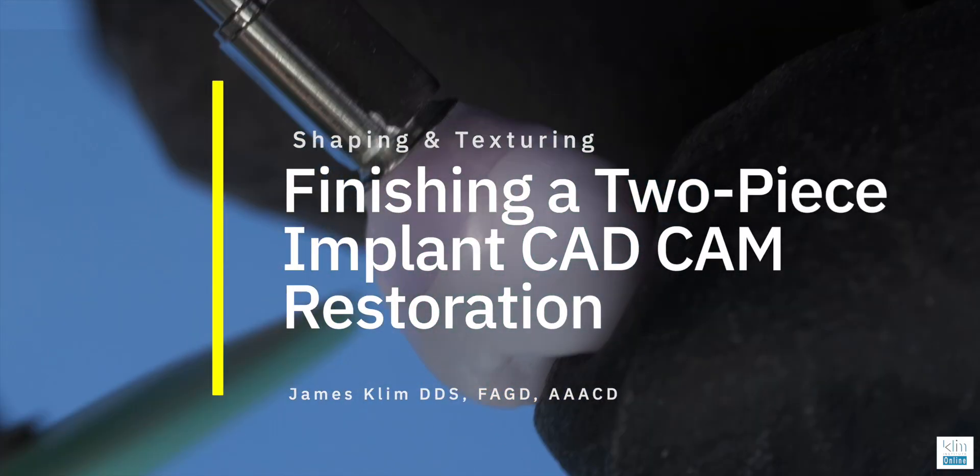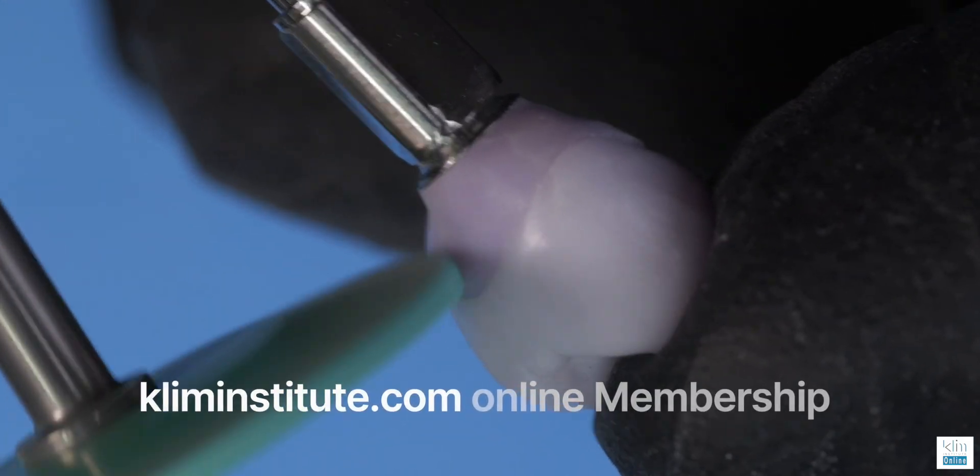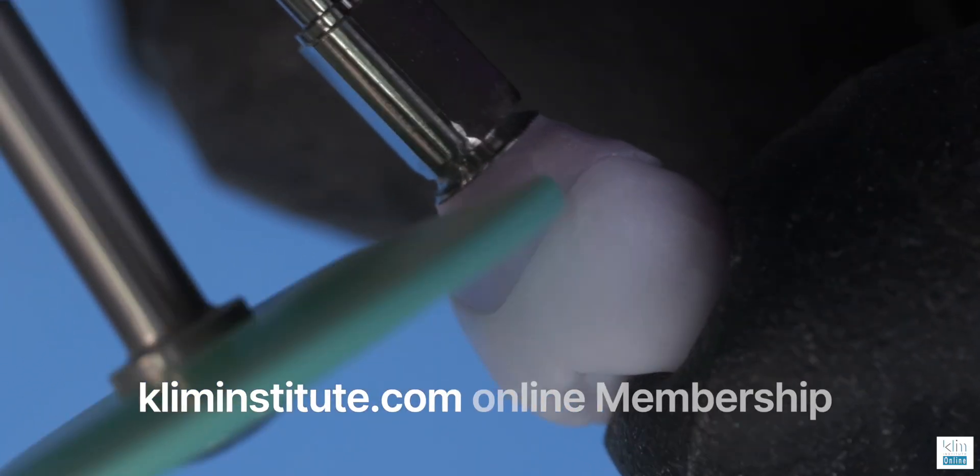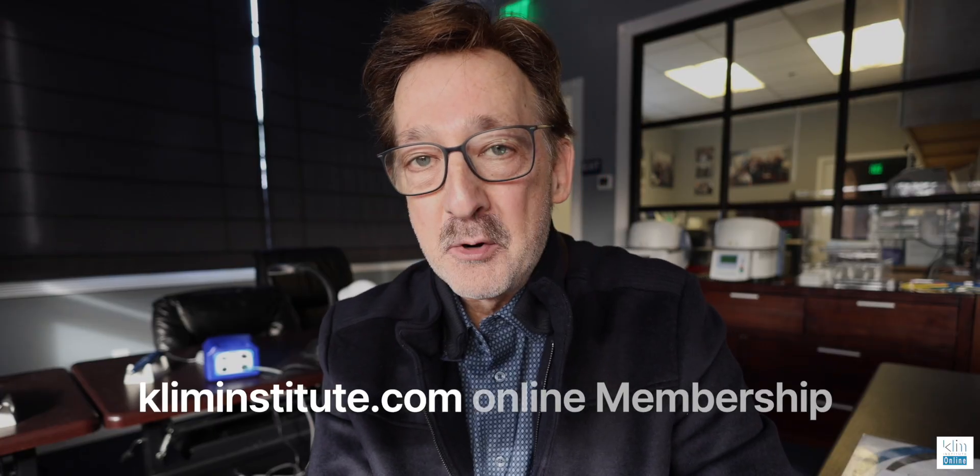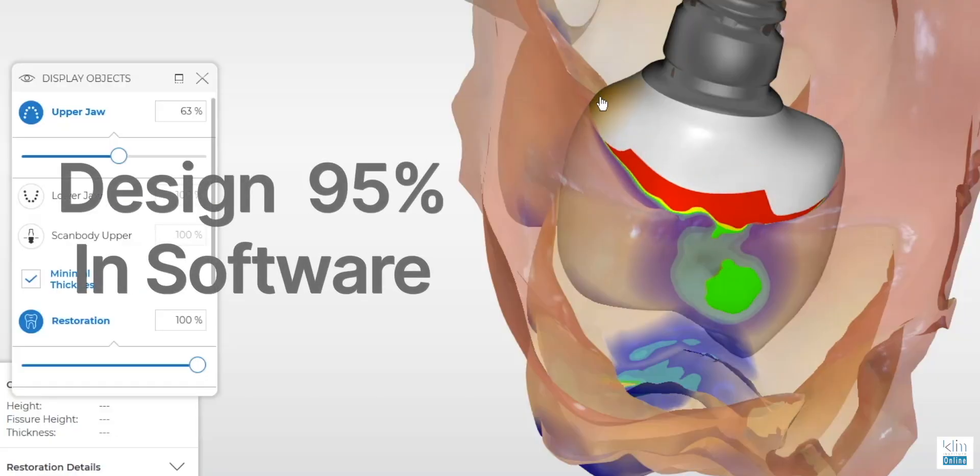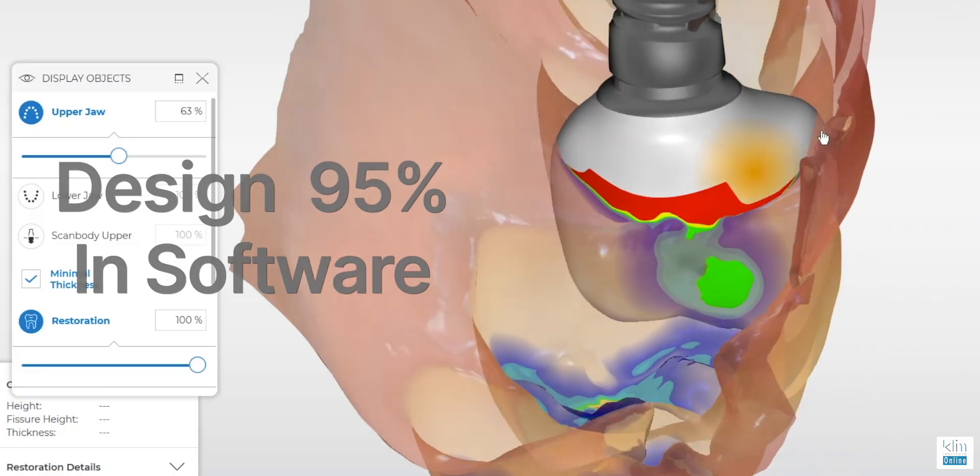There's a lot of other videos on this site that go through the scanning and also the design, the emergence design, all those things that are important to make it work. My goal is to get 95% of the design in the emergence and in the crown.